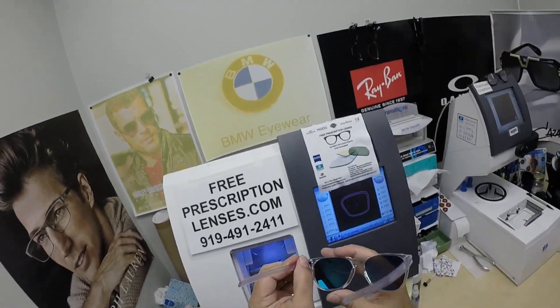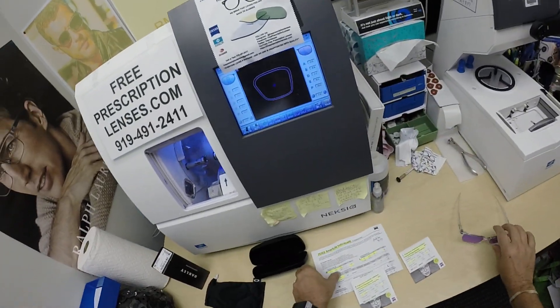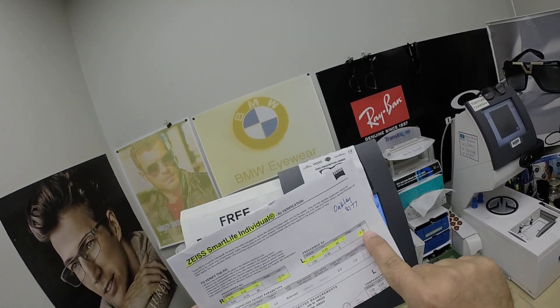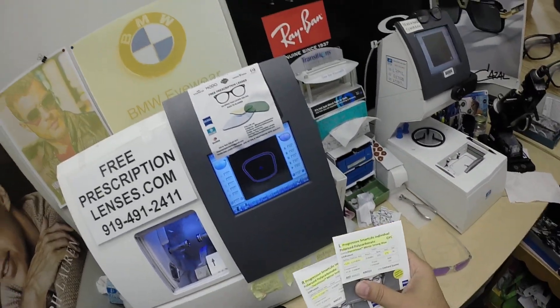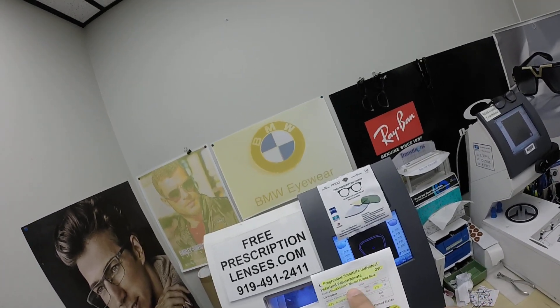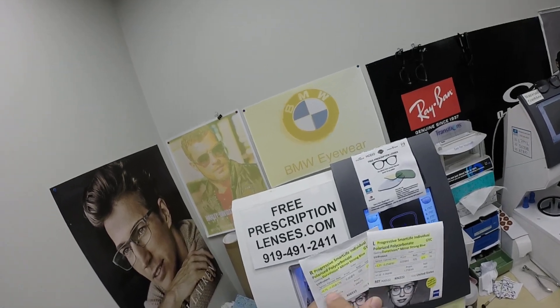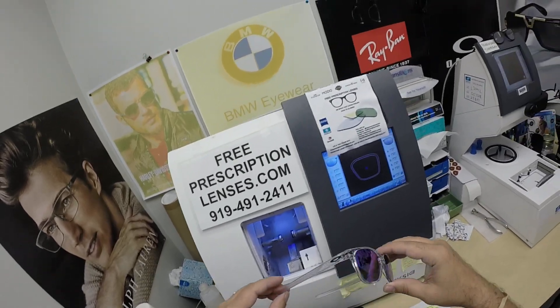With the back surface Duravision Sun anti-glare coating with polarized gray lenses, and the Zeiss Smart Life Individual Progressive. I've highlighted the prescription for the right eye, the add power, prescription for the left eye, add power, pupillary distance, optical center height. Same for the packets the lenses came in — progressive Smart Life, polarized, polycarbonate, gray — just a dark gray with a strong blue mirror. I can never get that German syntax from Zeiss, but the prescription for each eye is on there.